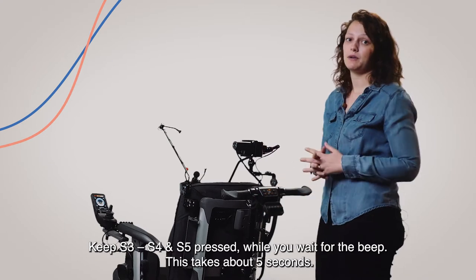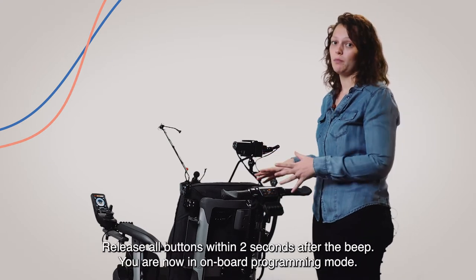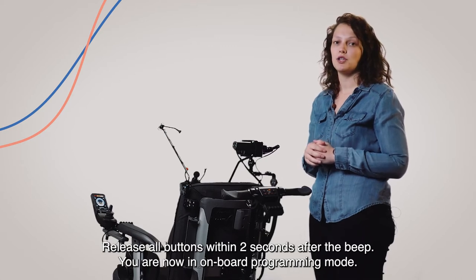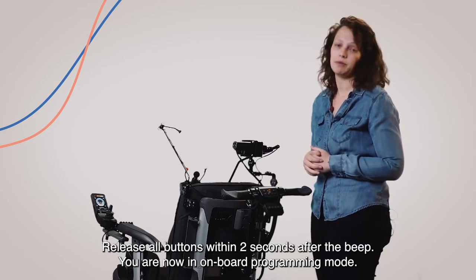This takes about 5 seconds. Release all buttons within 2 seconds after the beep. You are now in onboard programming mode.